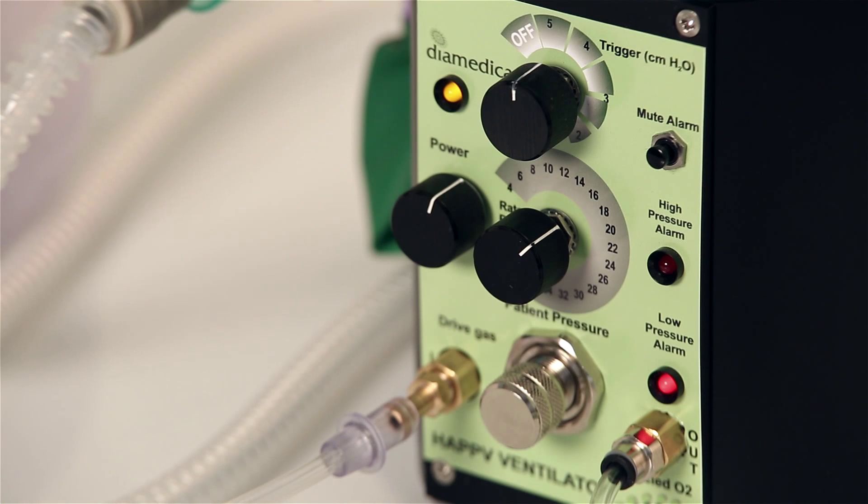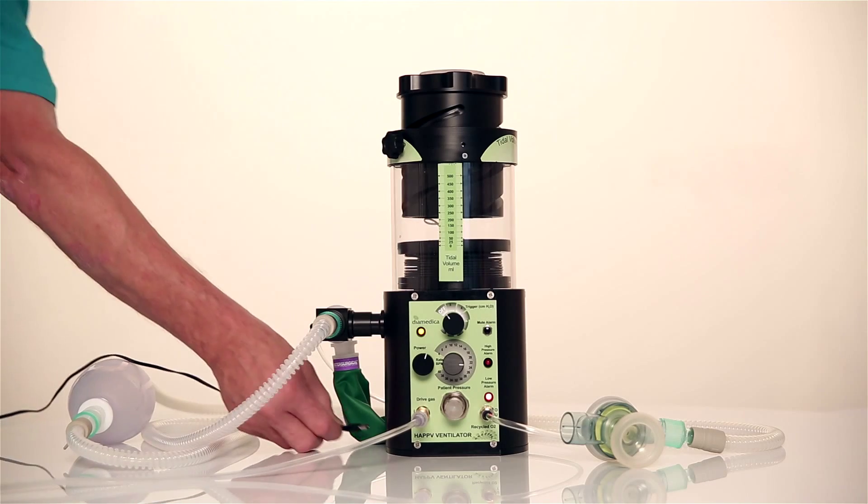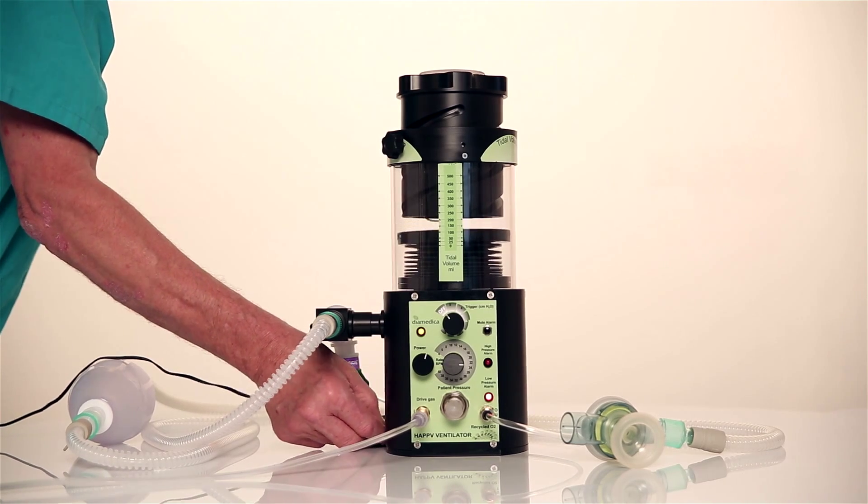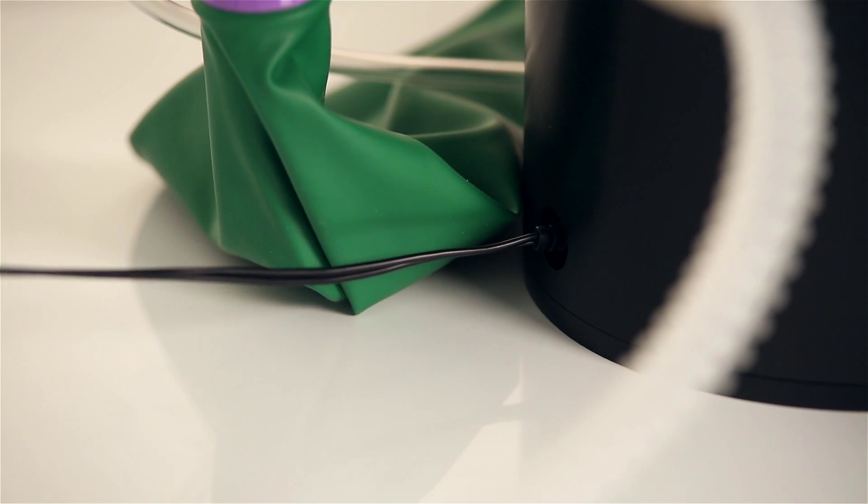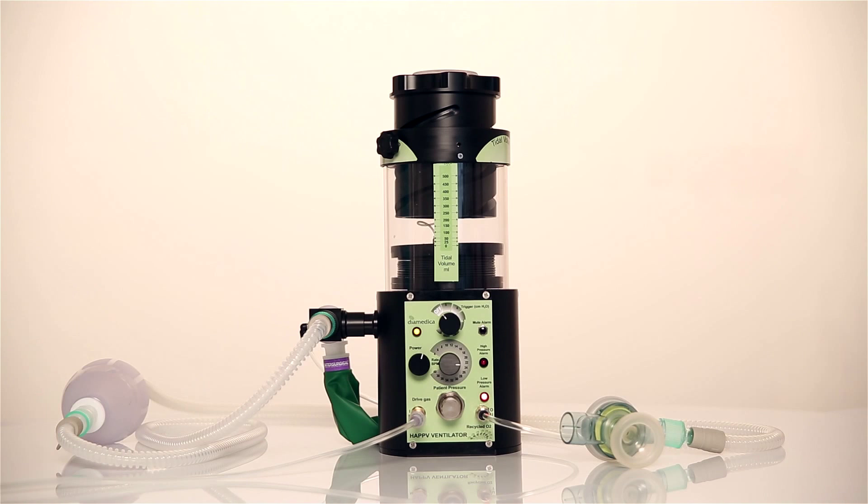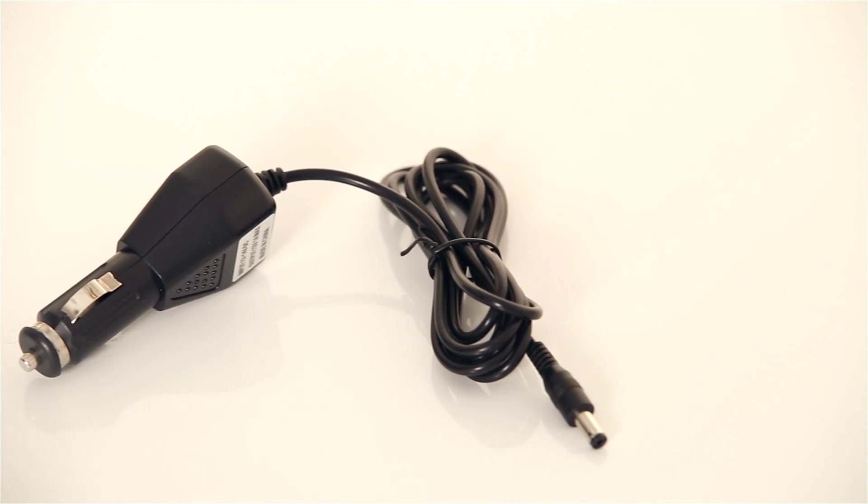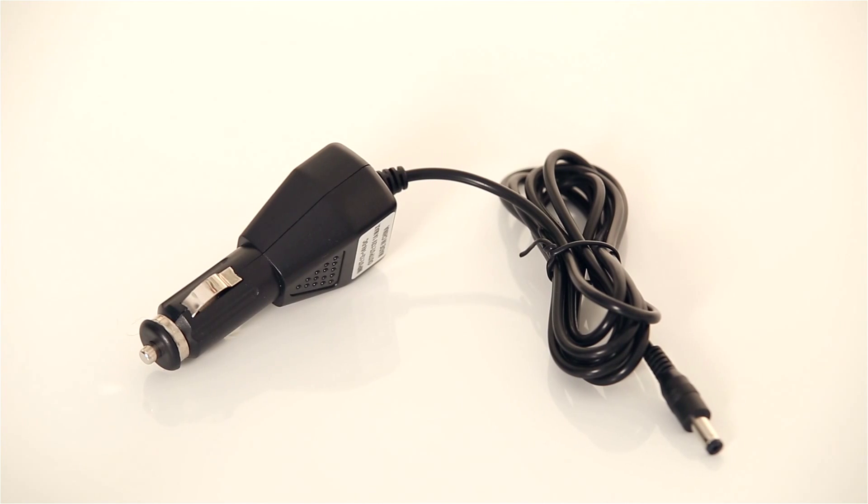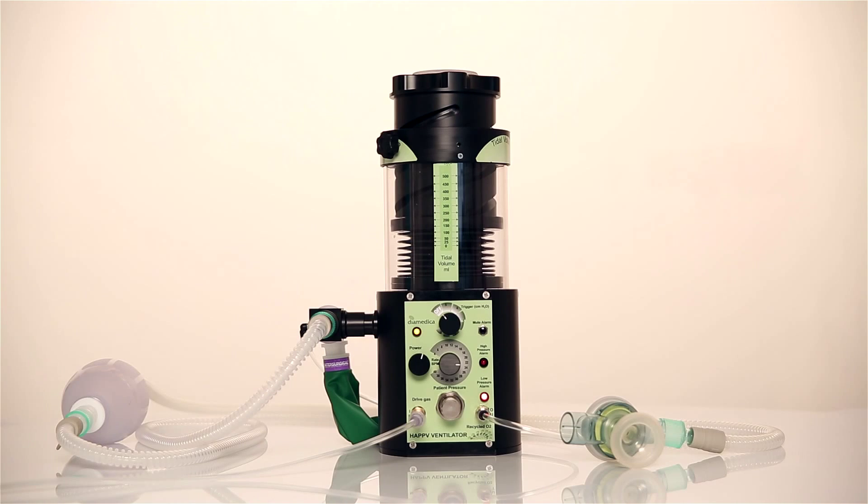The internal battery will run for 100 hours without recharge. To recharge the battery, connect the mains charger here. It will accept any voltage from 100 to 240 volts and there is also a 12 volt charger supplied. This battery should be kept fully charged by keeping the ventilator connected to the main supply when available.